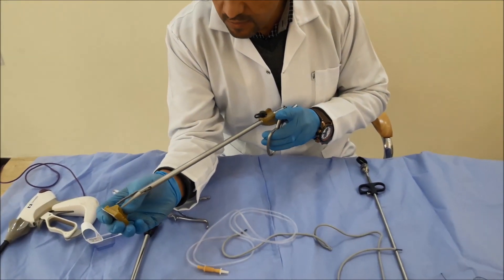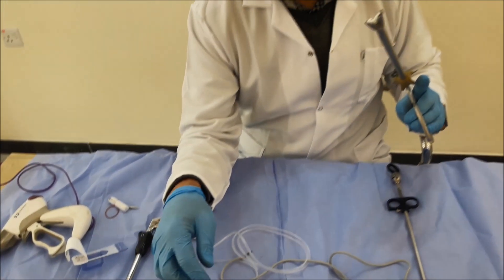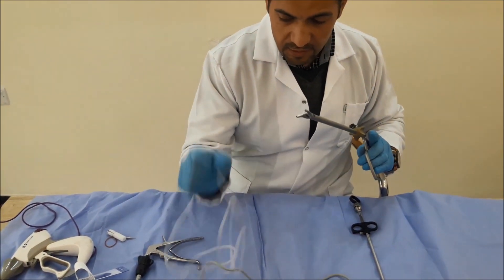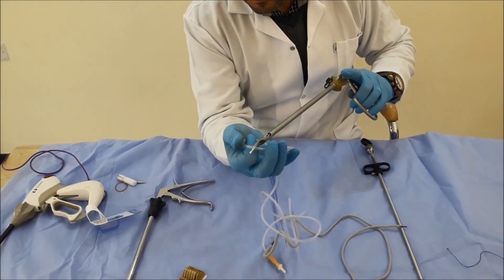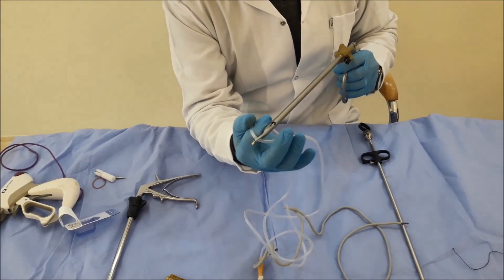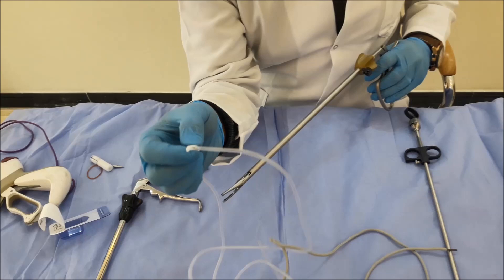How do we apply this? By this method. It is big size and contains something like a notch. We apply it — as a kick — and now it is closed. It is secure, 100%.